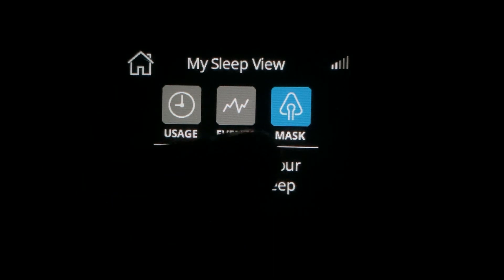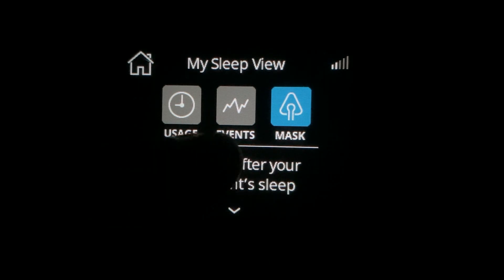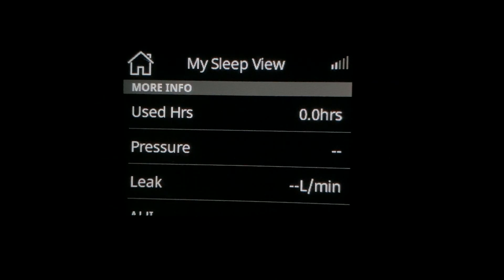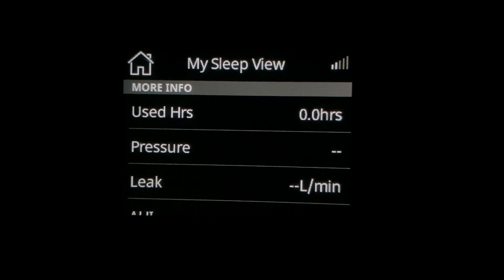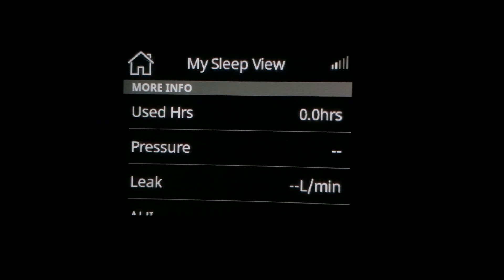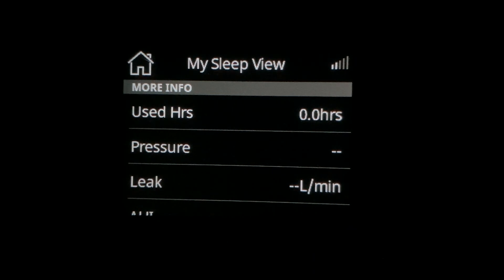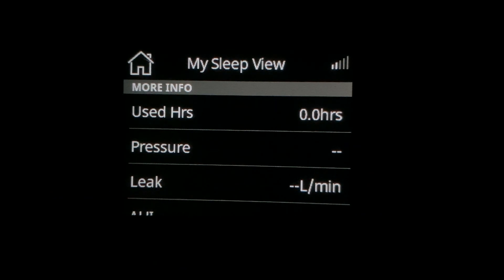I'm going to take my finger and swipe from the bottom to the top so I can scroll down on the touchscreen, and I will see a leak and then a number. It might also give you an option for the period of time you want to look at. You would want to look at only last night's information, so choose one day if you have that option.